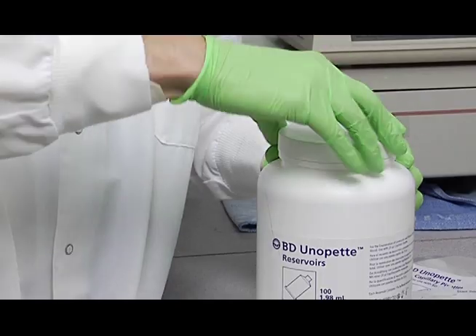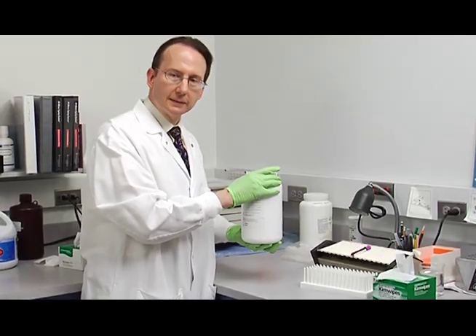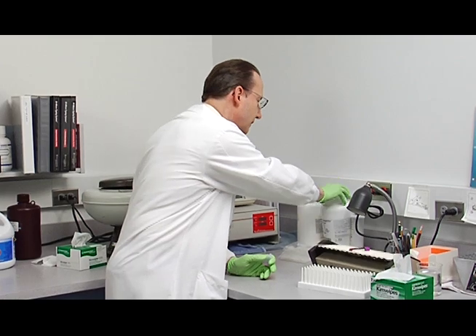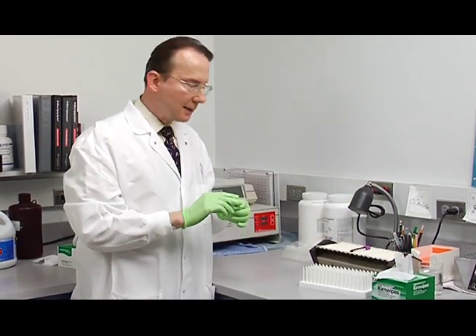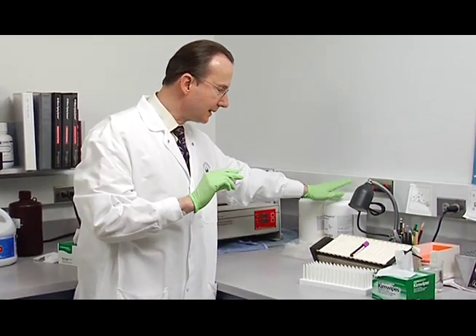And you always want to put the lid securely back on the canister after you've taken one out. There's a little bit of moisture in here that keeps these from dehydrating, and this needs to be on tight.